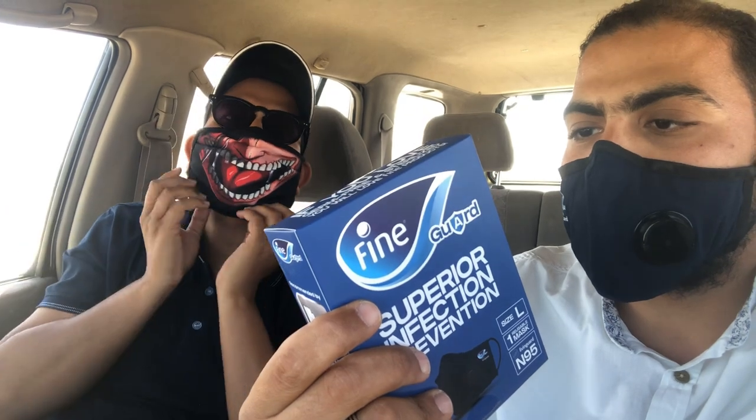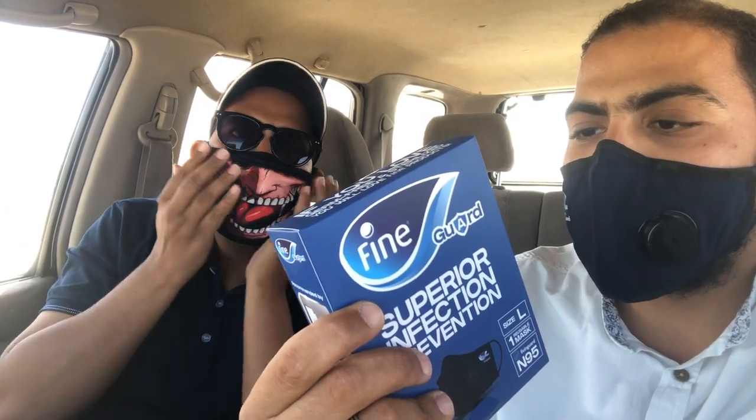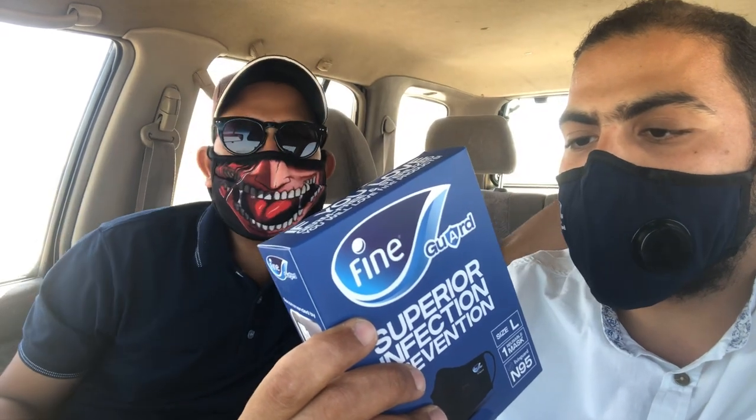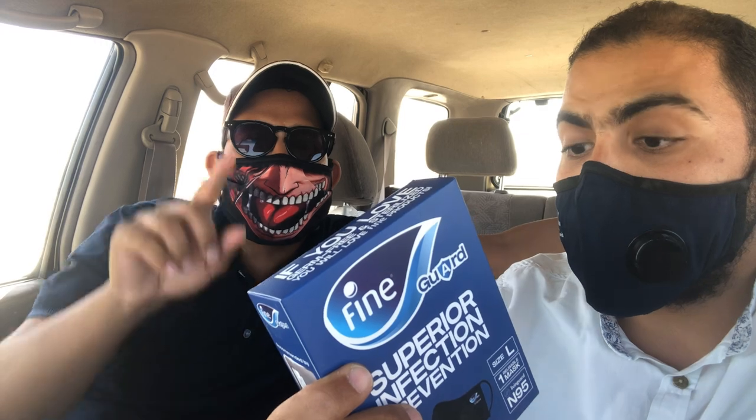They are also saying — why so serious? — it uses Swiss Technology that renders any textile into a safe and powerful protective material.